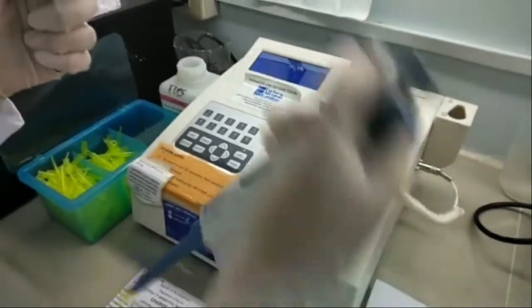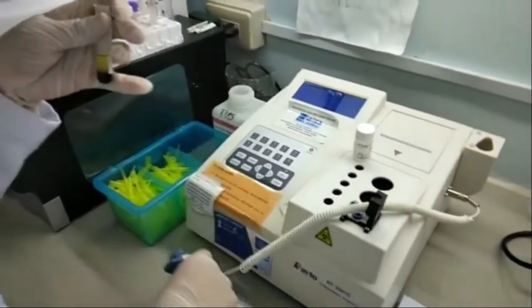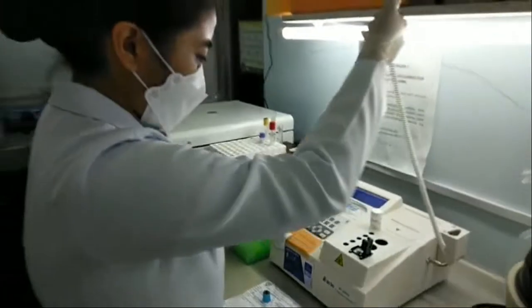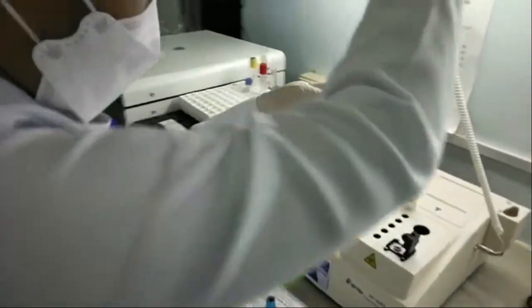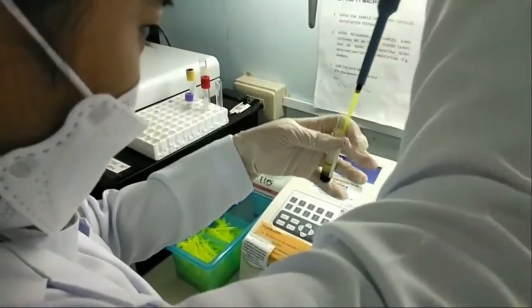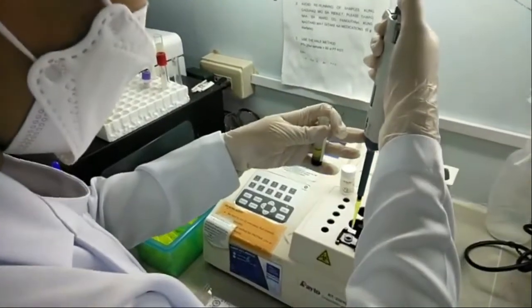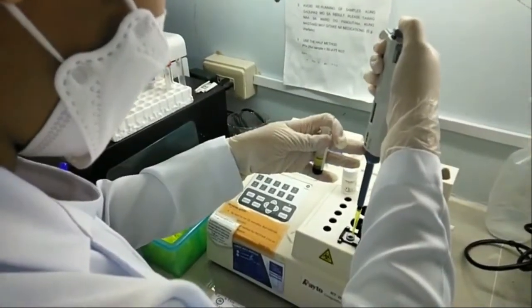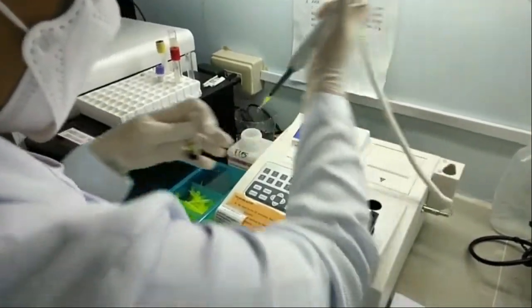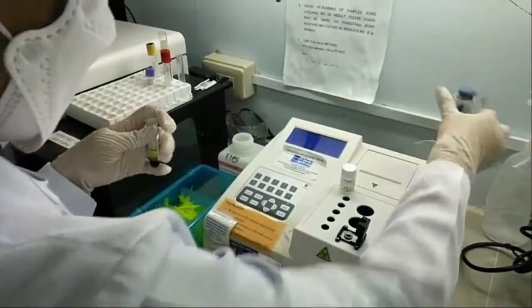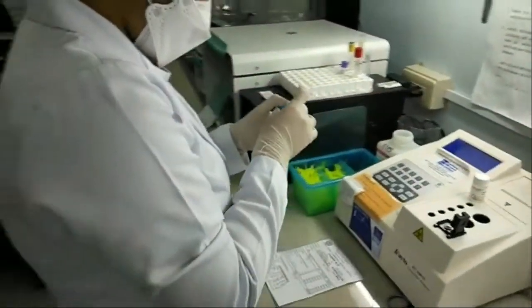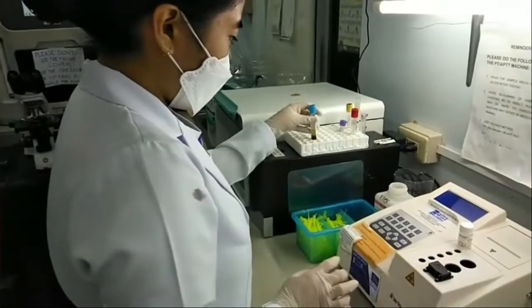The LCD will then display the PLACE SAMPLE command, which is to aspirate 25 microliters of patient's plasma. Discard the pipette tip after each use and do not forget to cover the test channel.